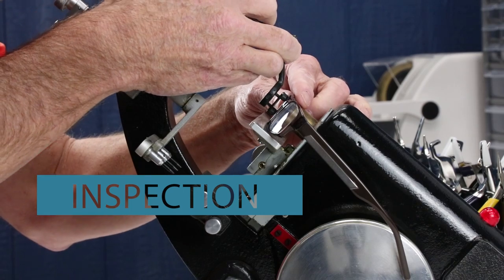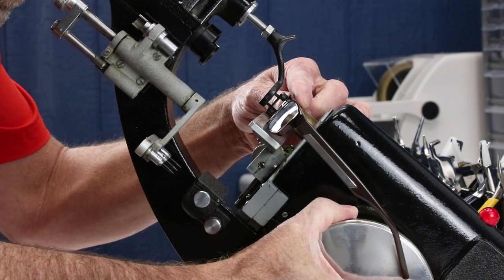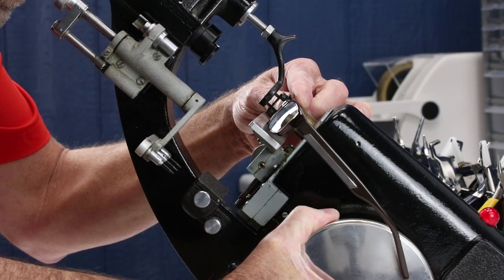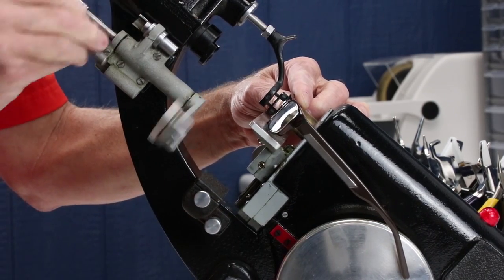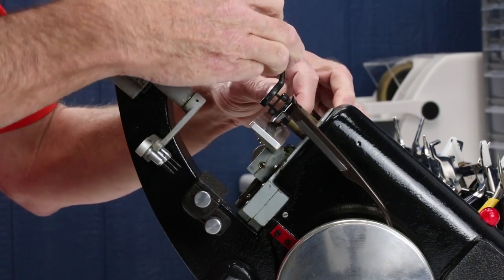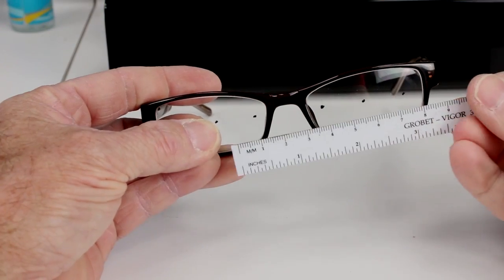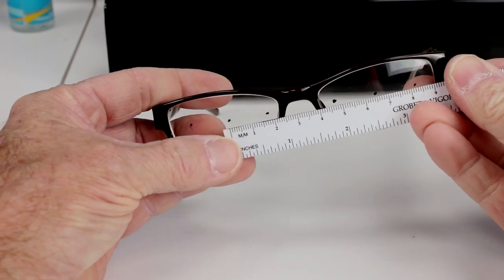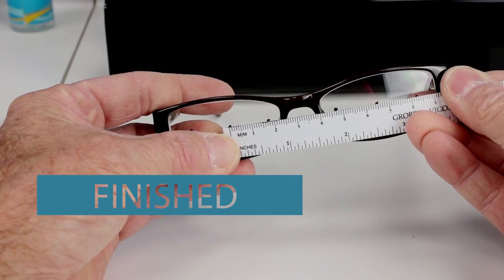Time for final inspection. Going to make sure your right is in your right, your left is in the left. That the lens is on axis laid out in the proper cylinder form. And of course, mark your OC for both the left and the right. Make sure that your lens OCs match your patient PD. And guess what? You got yourself a finished pair of glasses.